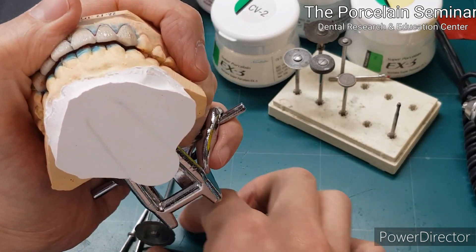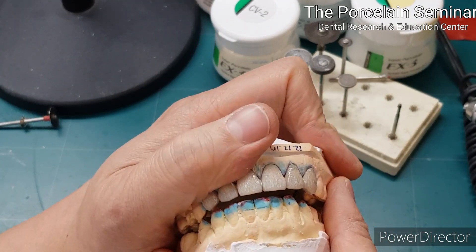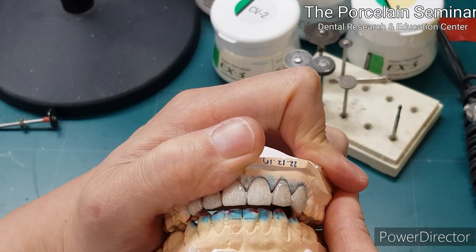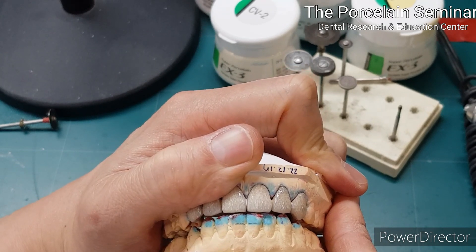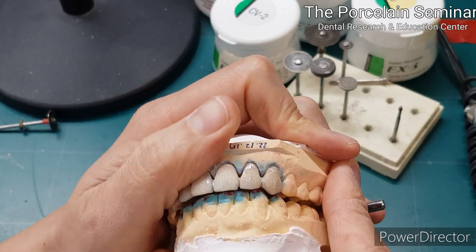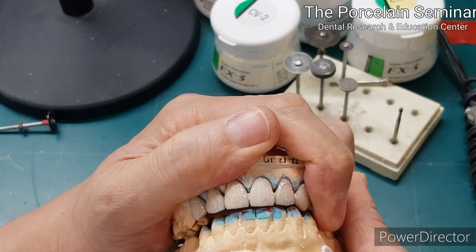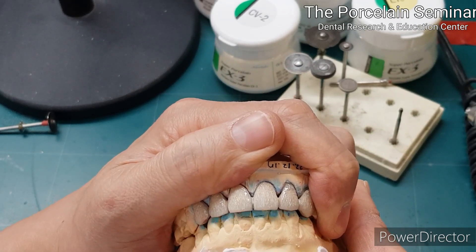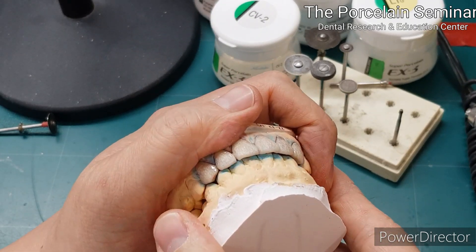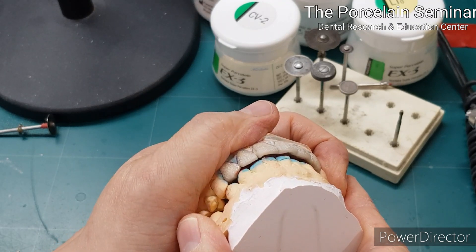그리고 이것들을 우리가 다 작업 측, 워킹 사이드, 밸런싱 사이드에서 했느냐에 따라서 이렇게 바뀌는 거죠. 치아의 길이가 결정이 되죠. 치아의 길이가 결정이 되는 것도 각각 교합 때문에 결정이 되는 거니까 그걸 여러분들이 기억해 주셔서 이렇게 해서 우리가 싹 꽂아버리면 환자는 굉장히 쉽다. 교합을 정확하게 할 수 있다는 거고. (Whether all of this was done on the working side or balancing side determines the outcome. Tooth length is determined by each individual occlusion — remember this, and once everything is set, the patient case becomes much easier with accurate occlusion.)